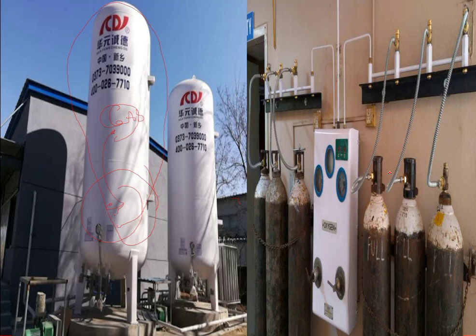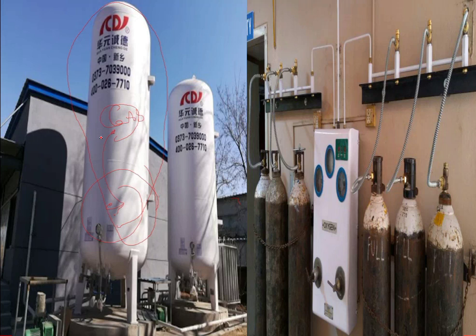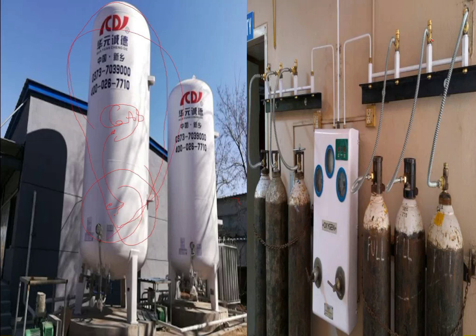When we talk about oxygen tanks at the backyard of the hospital, we are talking about huge hospitals. But in small hospitals, we can use what we call oxygen manifolds.